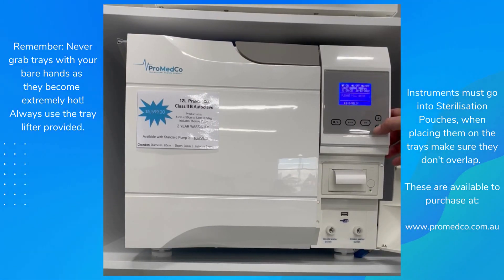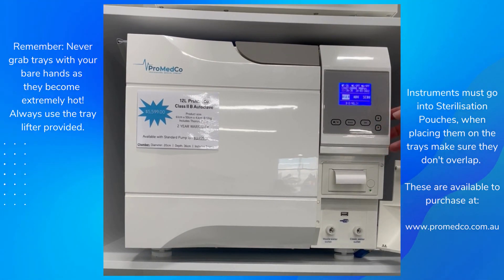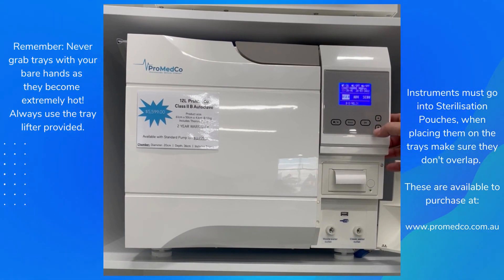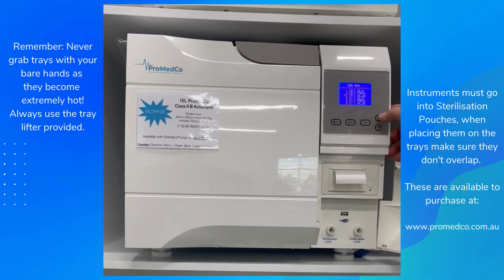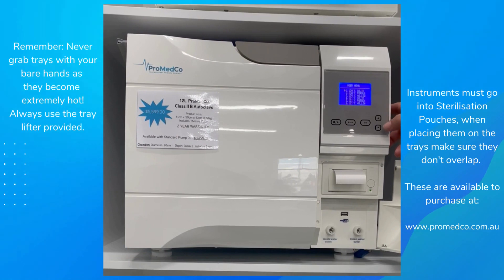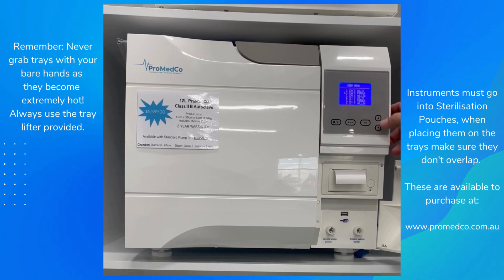Once we've run a vacuum and a Helix, it's time to run sterilization cycles. You only have to run a Helix and vacuum once a day, and you can run as many cycles as you need. To run cycles, go to 'User' and select the appropriate cycle. The solid cycle is for anything solid — essentially solid instruments.